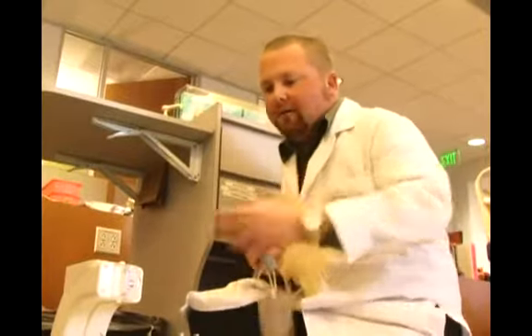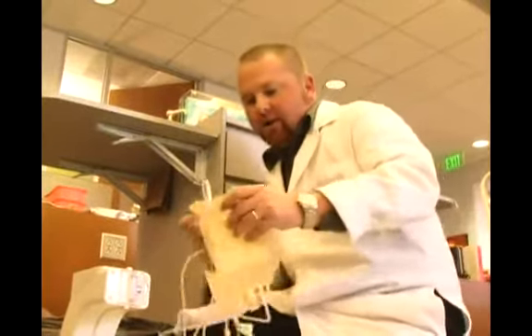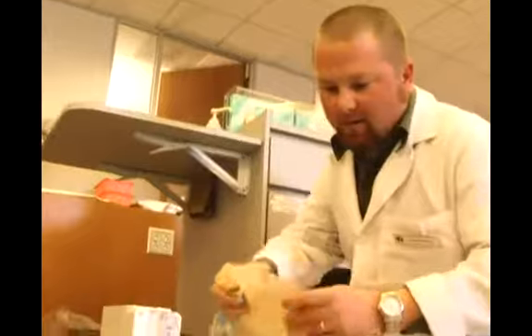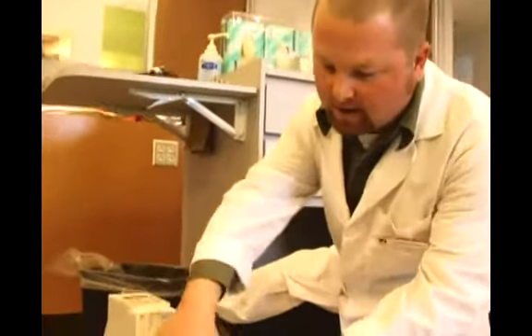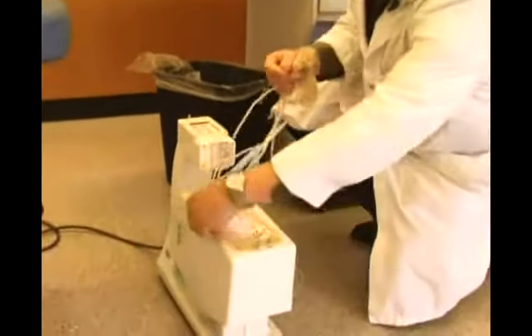For a whole blood donation, we have digital scales that weigh each unit of blood. Here's one of them here. So we would put our blood bag on the scale like this.